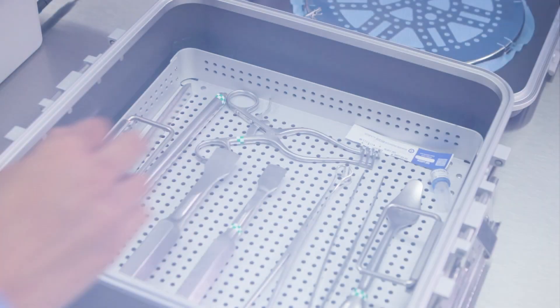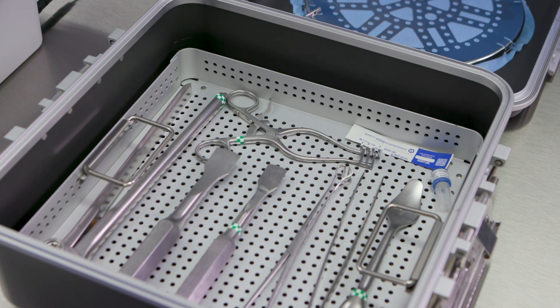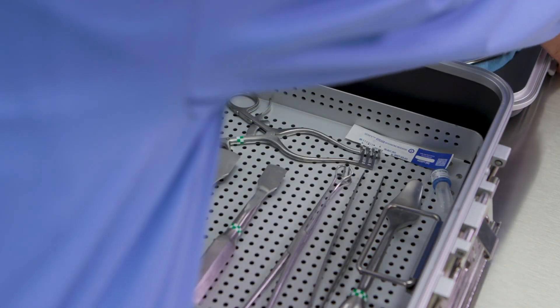For periodic product testing, the BI is placed directly within loads, along with appropriate chemical indicators, and processed in the sterilizer with a routine sterilizer load.